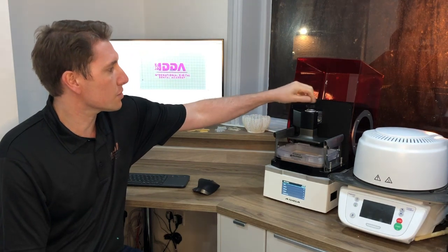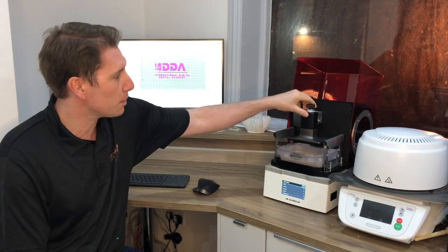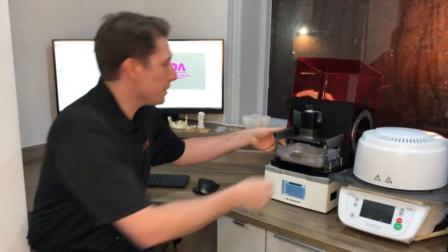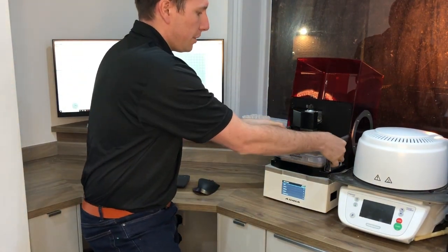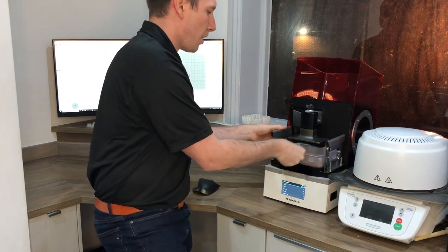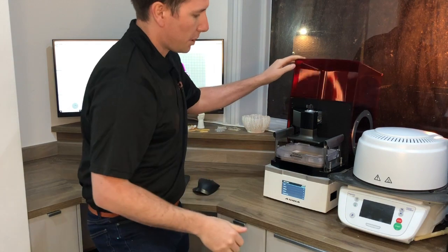So when you get it out of the box and you first calibrate and everything, it's just so nice and easy to just slot this in loose and it auto-calibrates. And then when I'm taking the print bed off and swapping things over to change resins, it's so nice and easy to just slot that on and off, pop it straight back on, and away I can print again with a different resin.